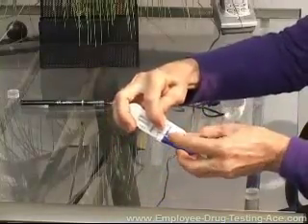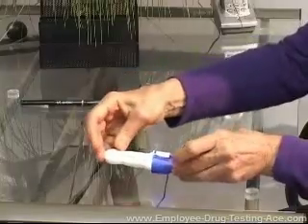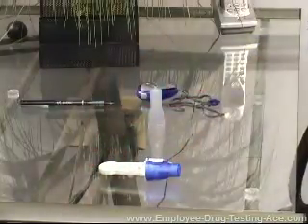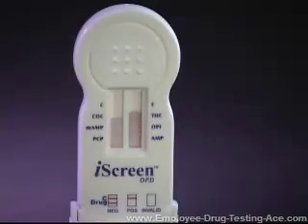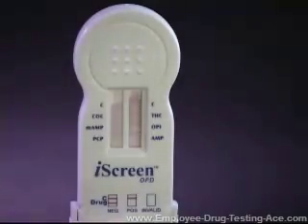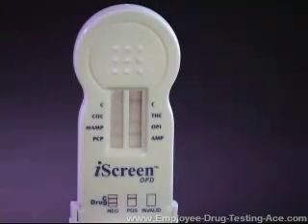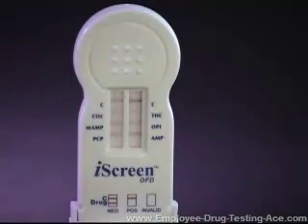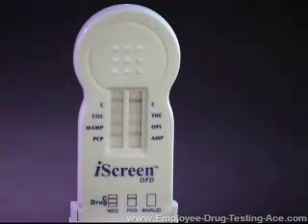Place the device on a desk or table with the test strips facing upward. Within seconds, you will notice a pinkish migration or flow of sample as the test strips are running.